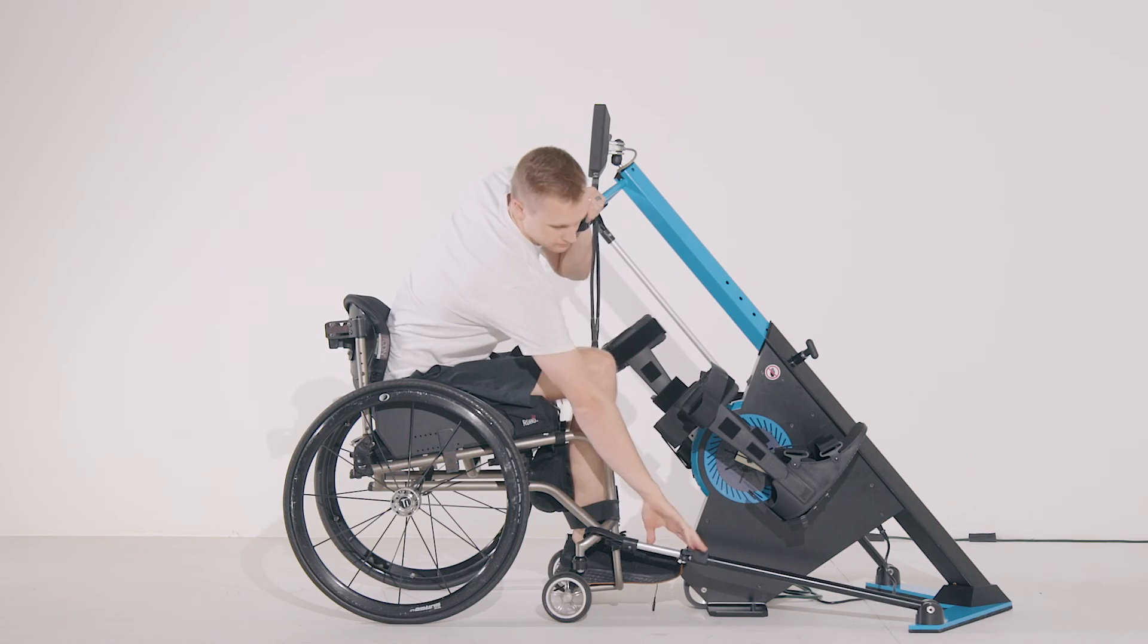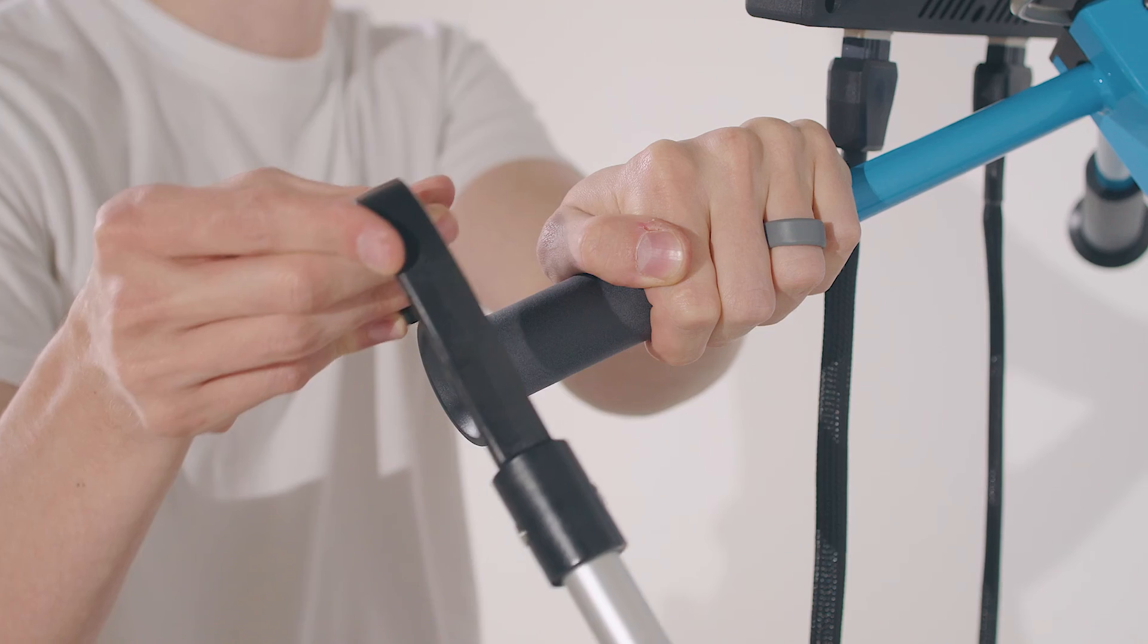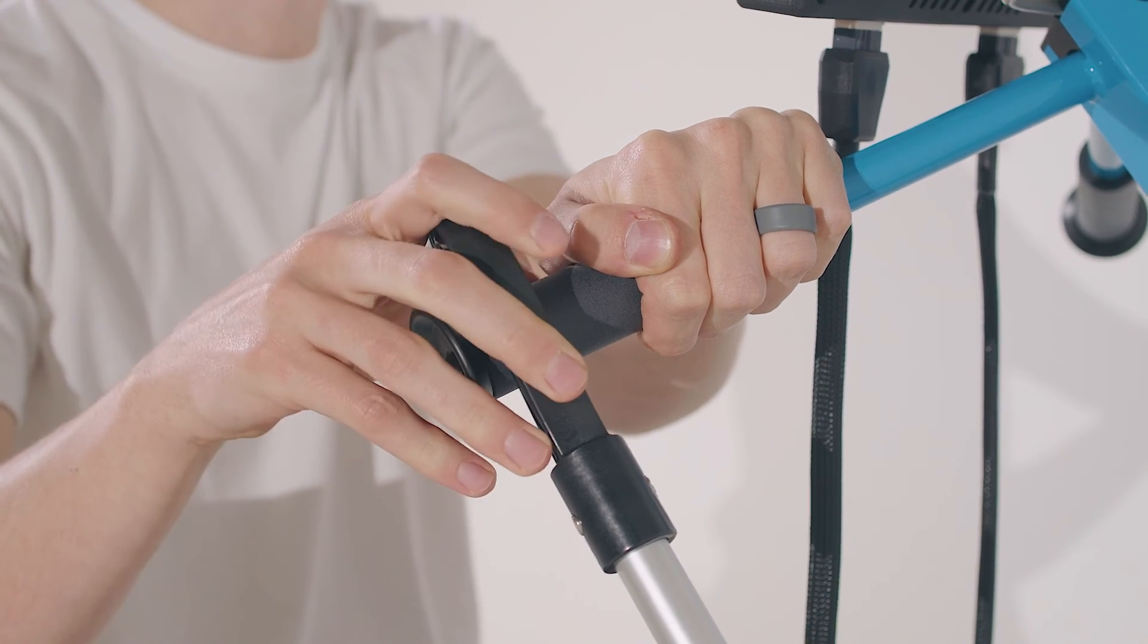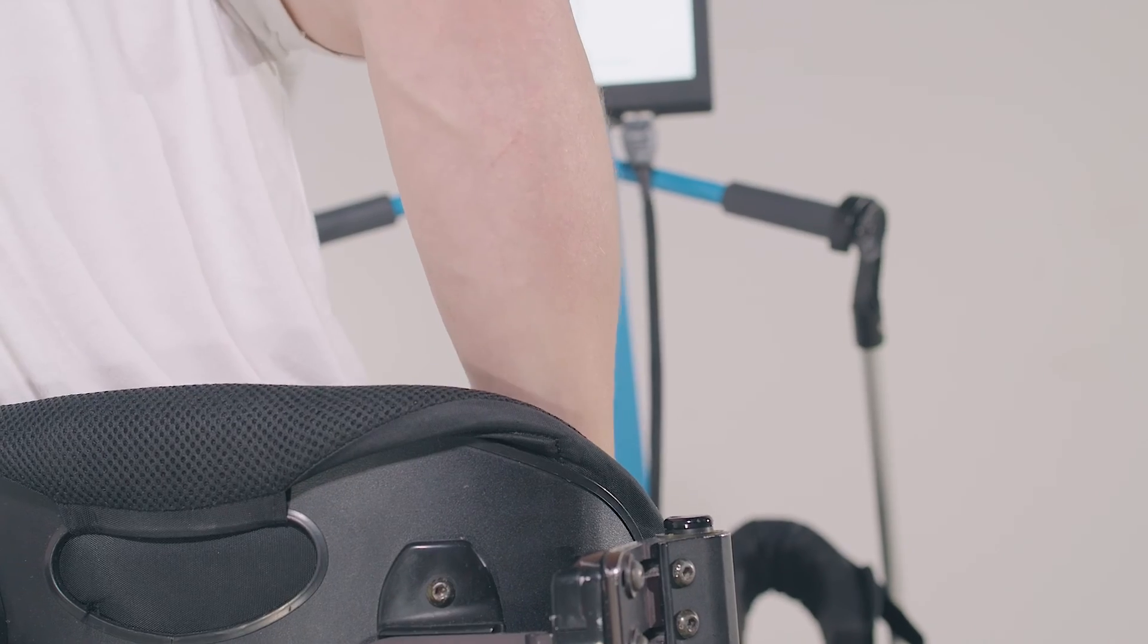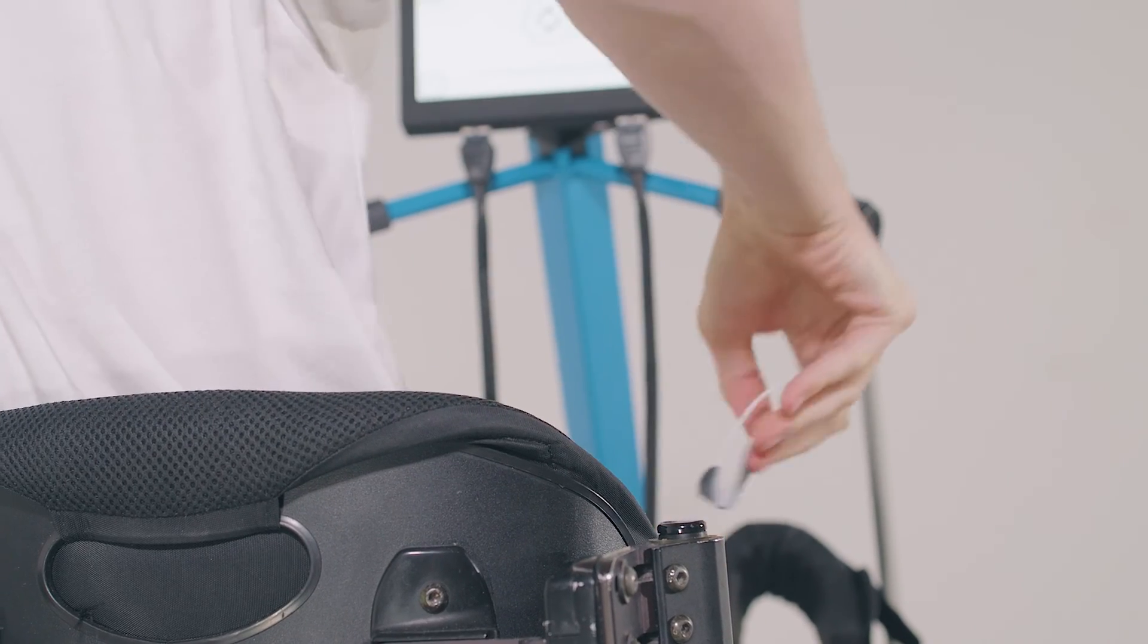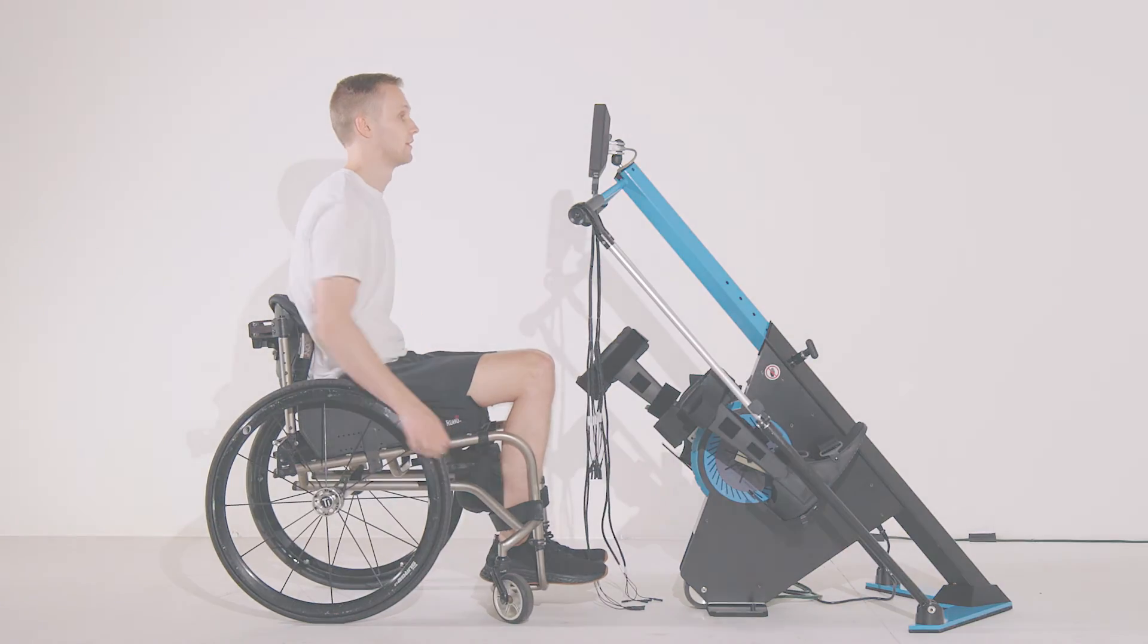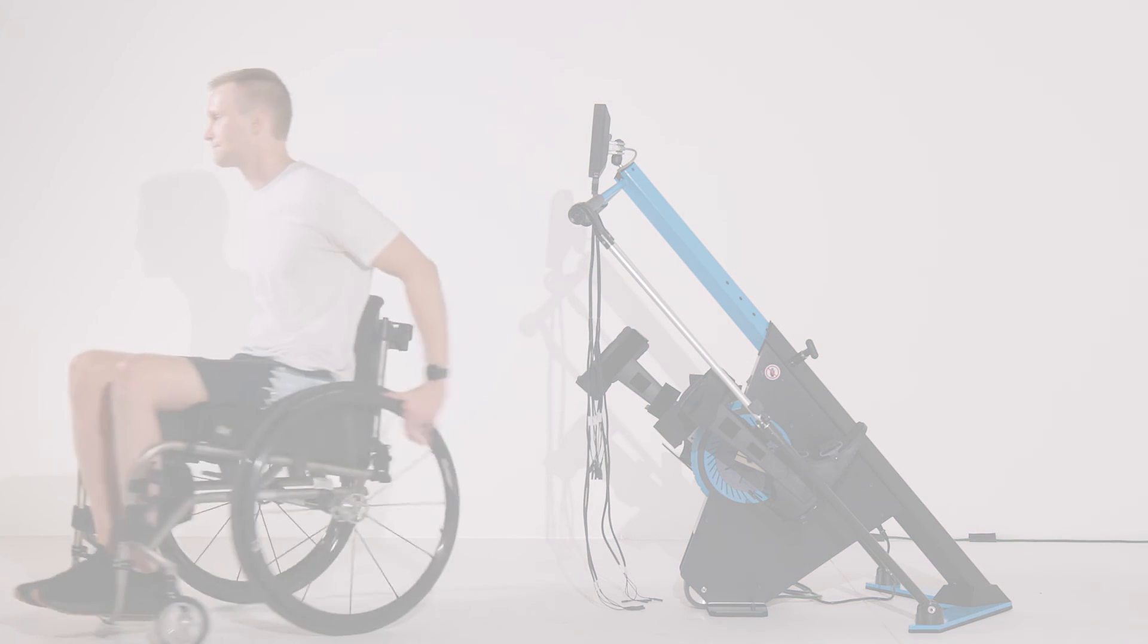Remove your chair attachments and hook them onto the handlebars for easy storage. Finally, don't forget to remove your glute and trunk electrodes. Great work! You've completed a myocycle session.